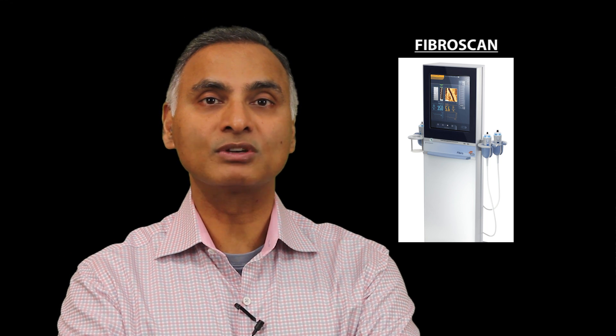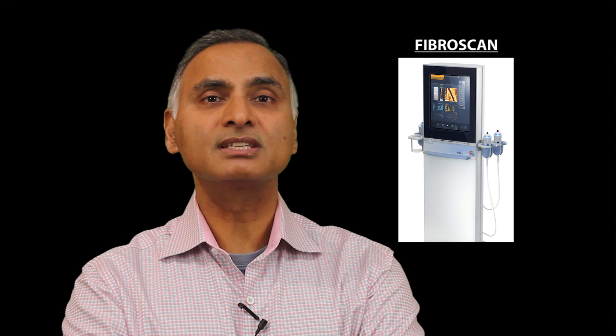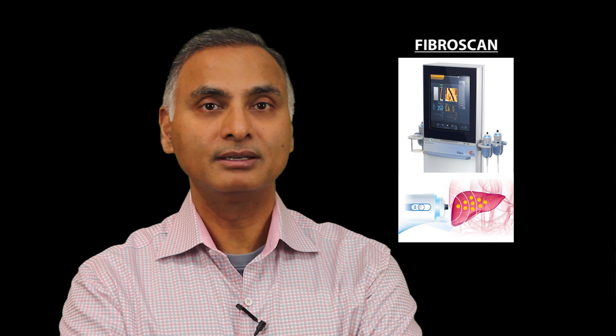There's one tool called FibroScan. In 2003 it was approved in Europe, and for the last 12 years they have been using it to evaluate the liver and find out if it is scarred or not. Only in the recent few months it has been approved in the United States, and right now there are less than 20 centers in the country that have this FibroScan. It's a simple ultrasound but it has a tool which will help you evaluate the liver and tell you what percent of the liver is fatty and if your liver is scarred or not.